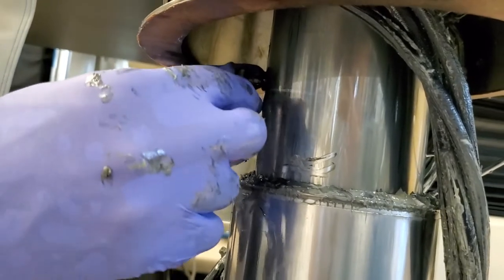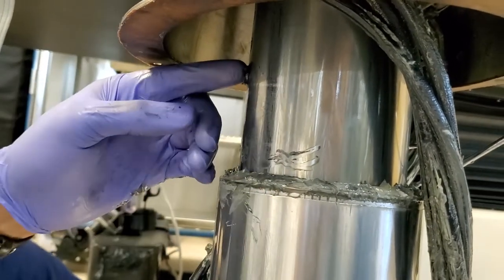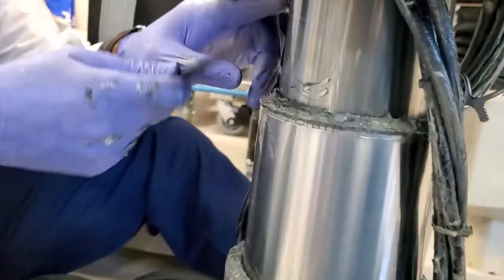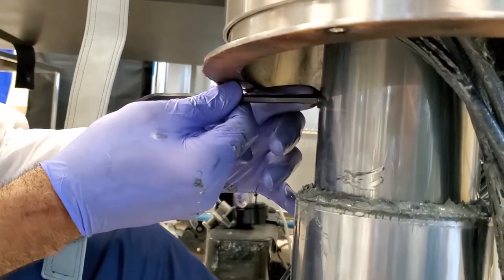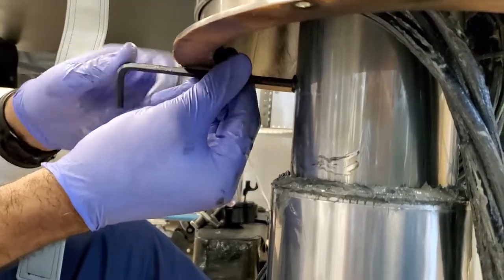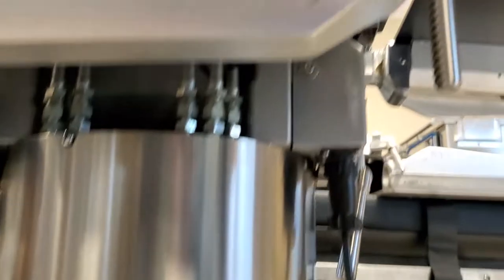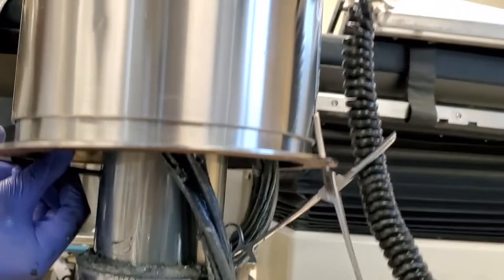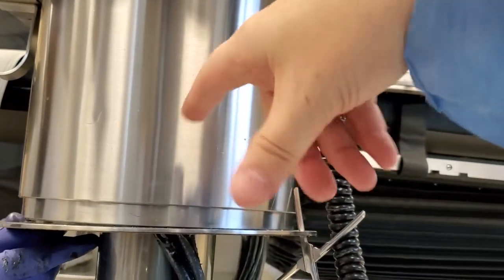Alright, we're working on the lower. Where's the other? That's faster than me. Right here. Going old school on it. There we go. This is the Skytron 6701. It suffers from the same exact problem. It's pretty much any of the tables that have the rotating base.